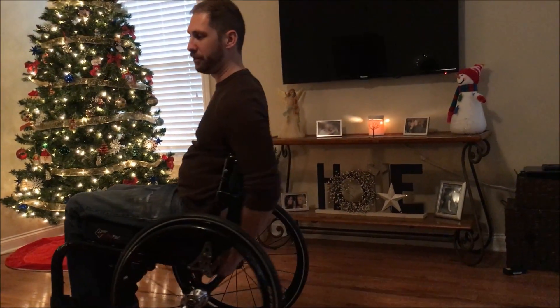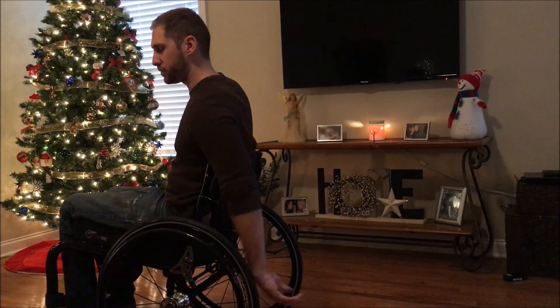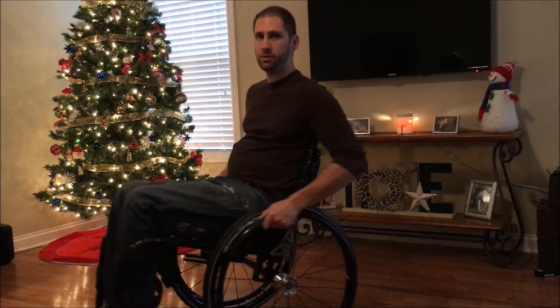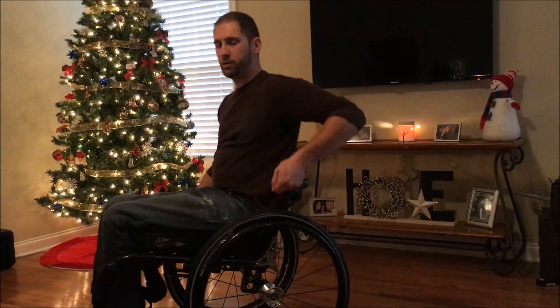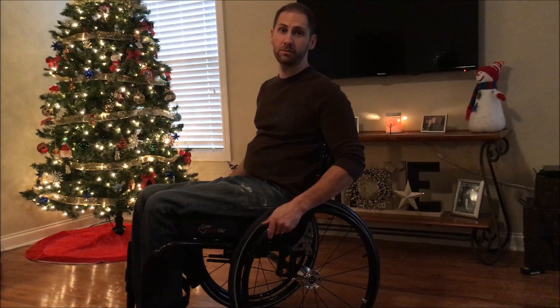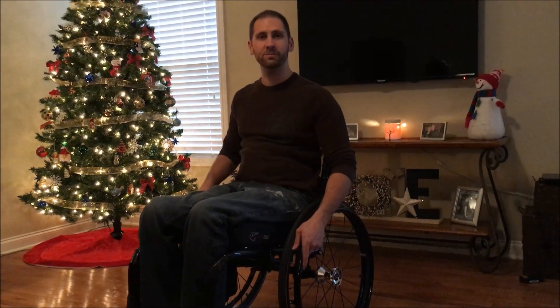So that's pretty much what I wanted to show you. If you want to practice wheelchair wheelies but you don't feel comfortable — you're afraid you're going to fall back — a suggestion I would give you is to tie a belt or a strap onto the axle and have an assistant stand behind you with the belt. As you are doing a wheelie, if you start tipping back too far, all they have to do is pull up on the belt and you won't tip backwards. That's a tip I learned when I was in rehab and it gave me the confidence to figure out how to do wheelies. If you have any questions, let me know — I'll talk to you soon.